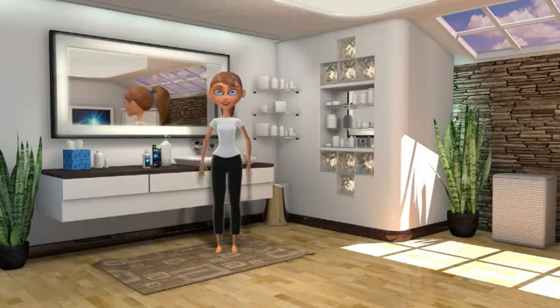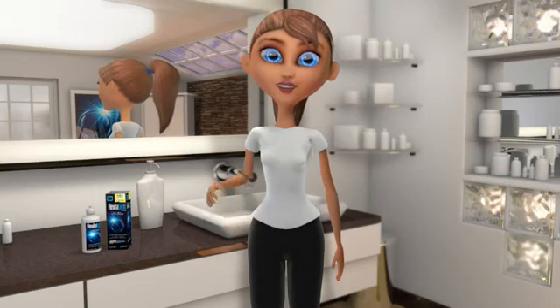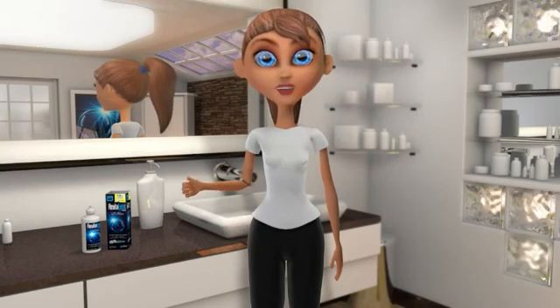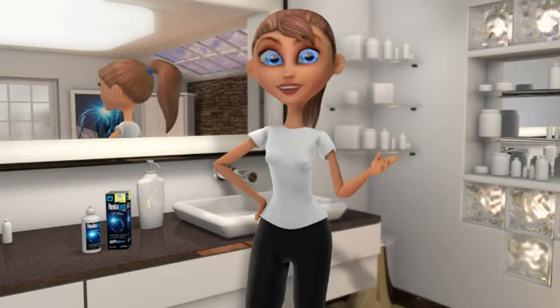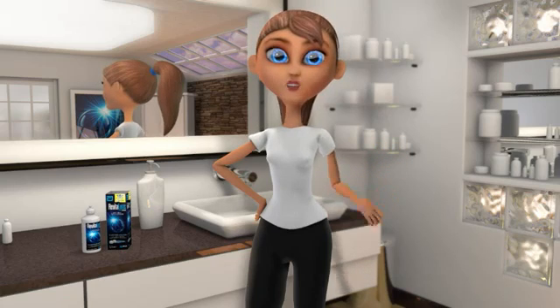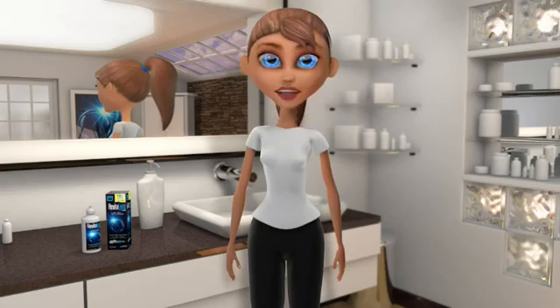Hello, I'm Vida, your guide to proper contact lens practices. From selecting the best lens solution and cleaning techniques to applying and removing your contact lenses. Keep in mind that what I'll be talking about in the next few minutes is meant as a guide. If you have specific questions or concerns, please ask your eye care professional.